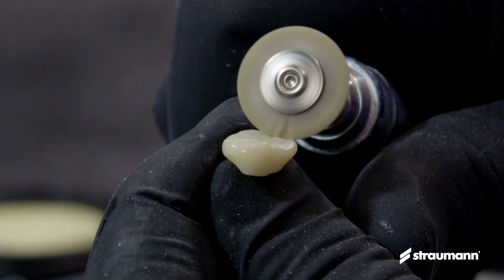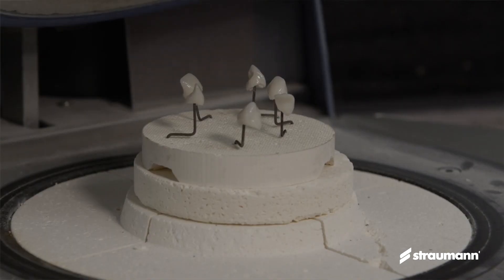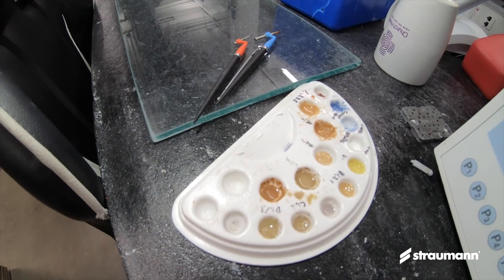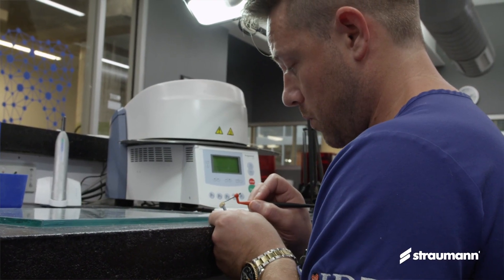There are many things we've enjoyed about using nice. The versatility of it — being able to be polished or put into an oven, the fact that when it first goes into the oven it's already tooth colored, and you know what colors you're putting on the tooth and what the result will be after firing. Having two different firing cycles is also beneficial for achieving either a more translucent look or a more color-correct look.